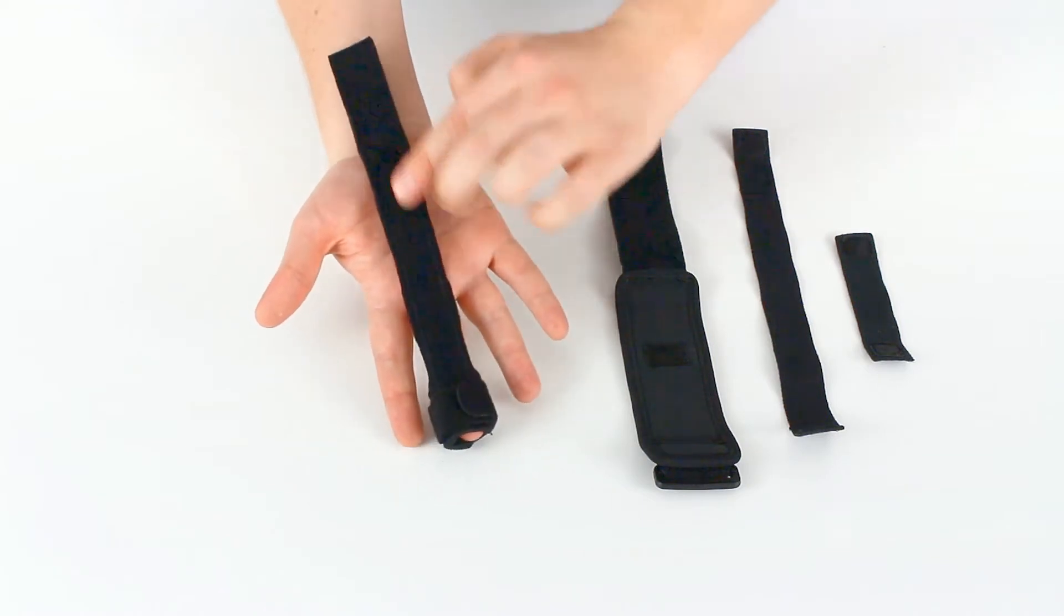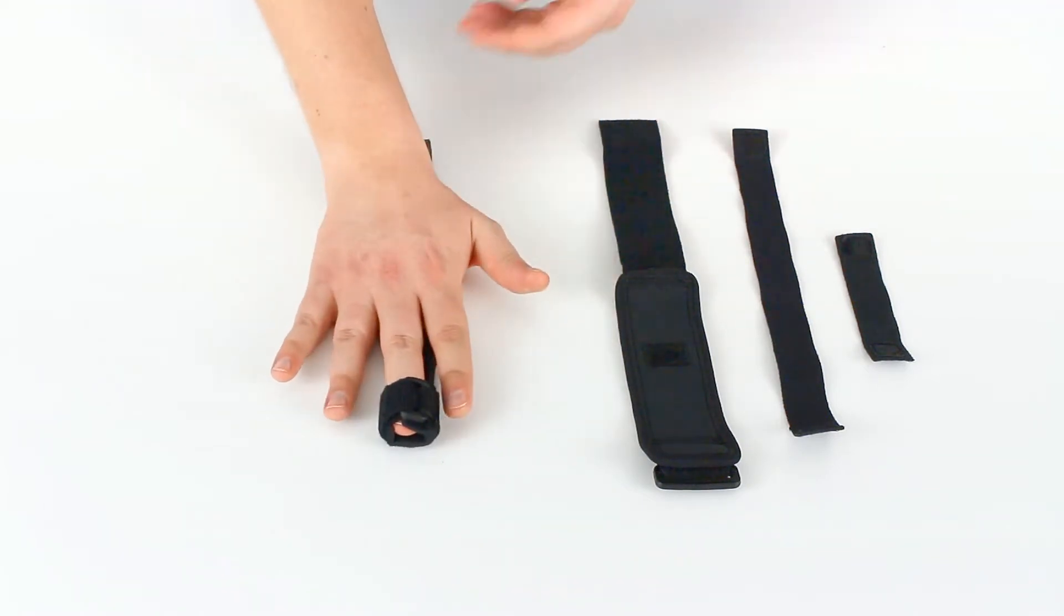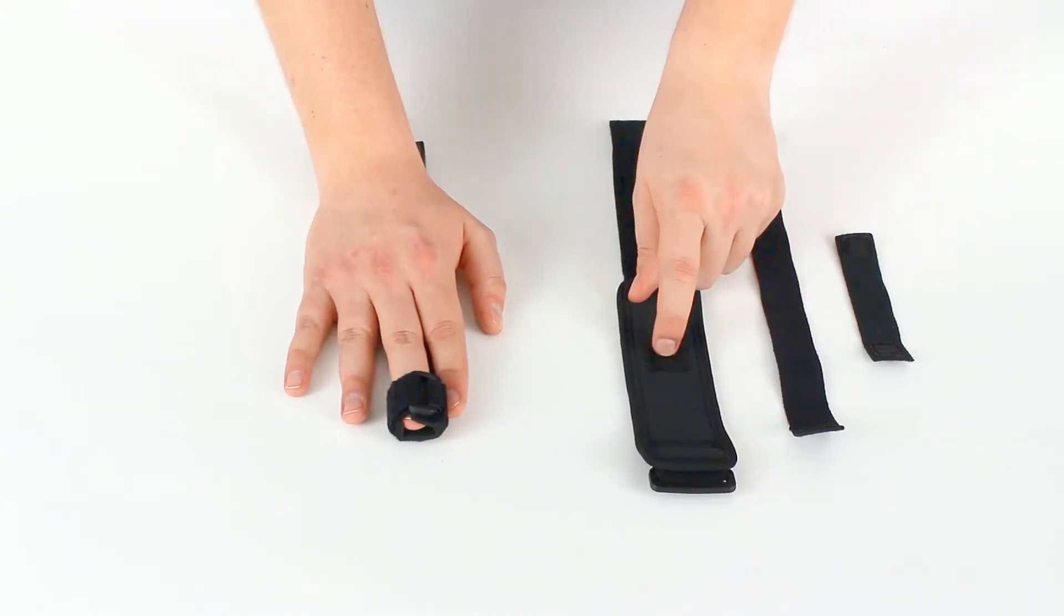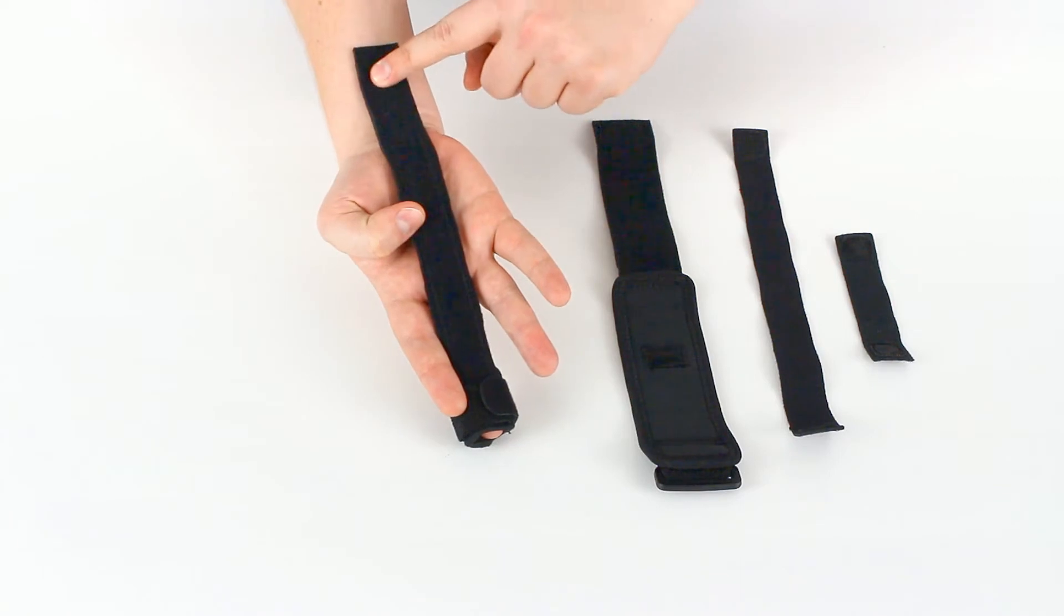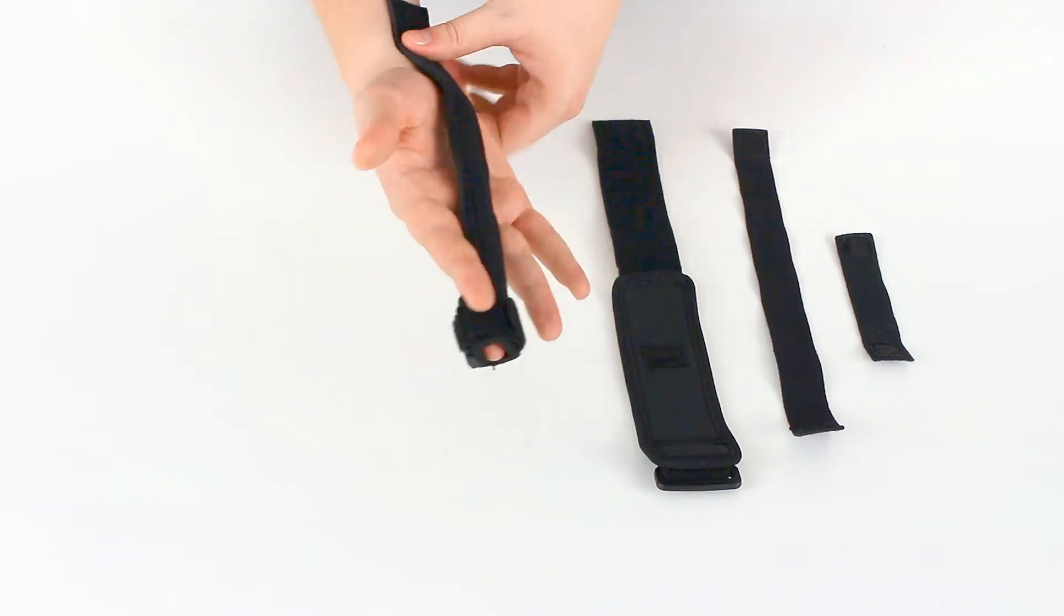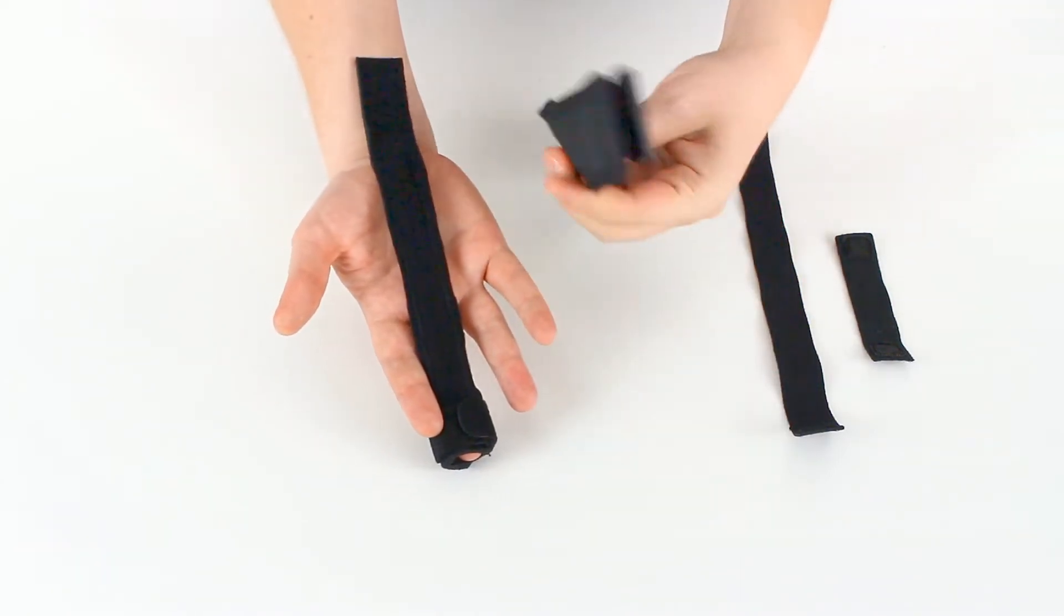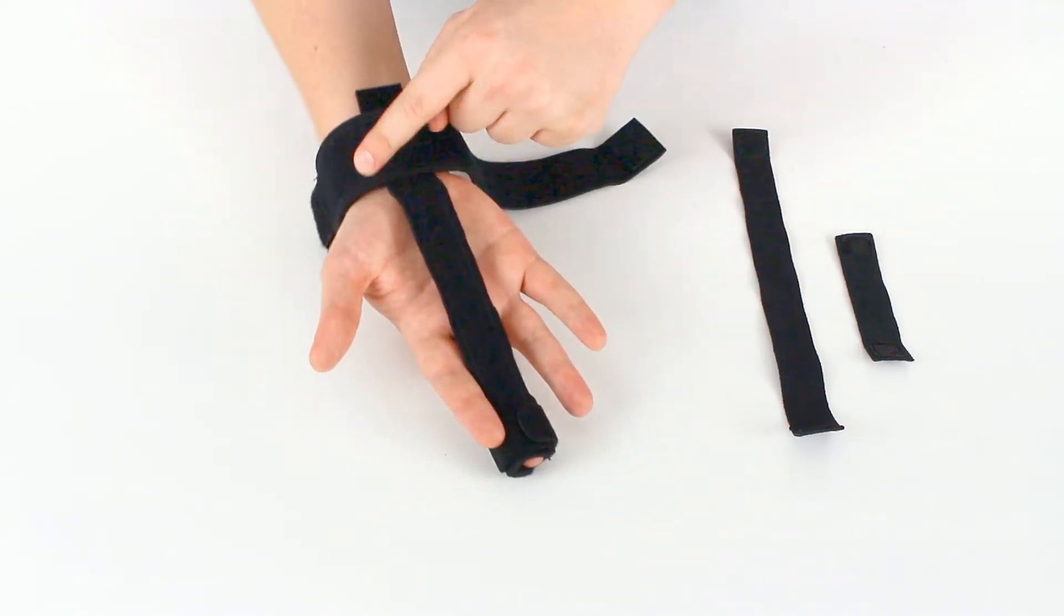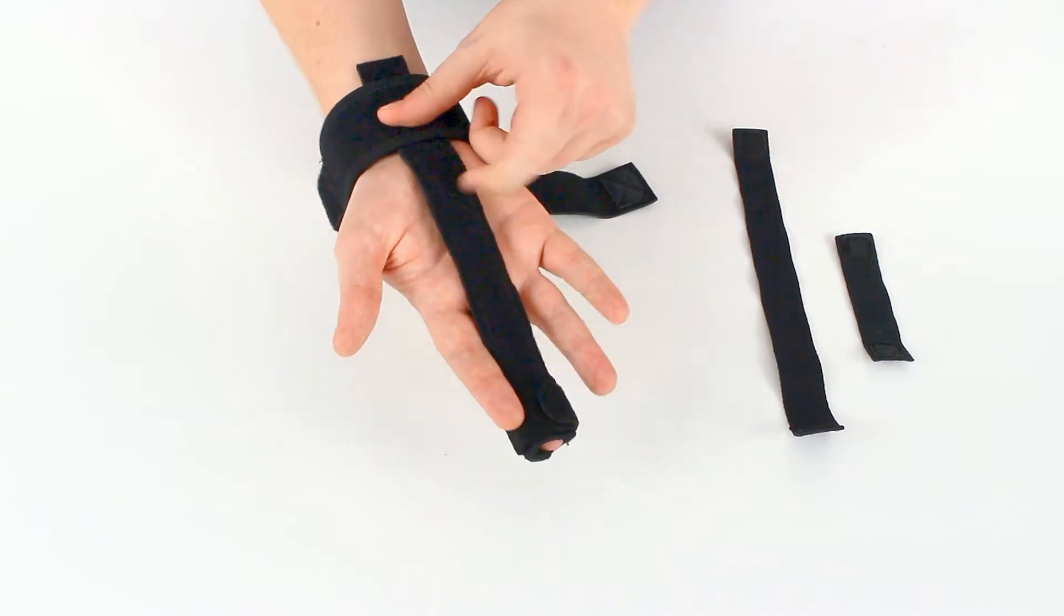Again, rough side is facing out. Smooth side is facing in. Now we will attach this little velcro patch to the rough side of the strap here right around our wrist. We want to position that so that the top of this strap is right against the crease of our wrist.